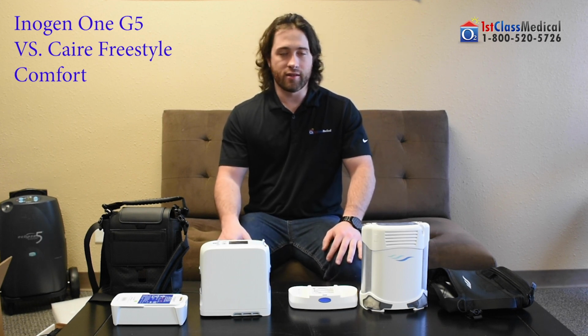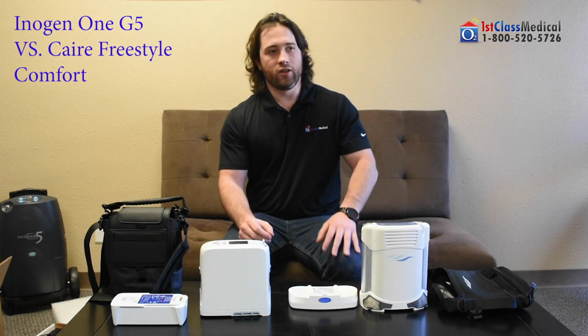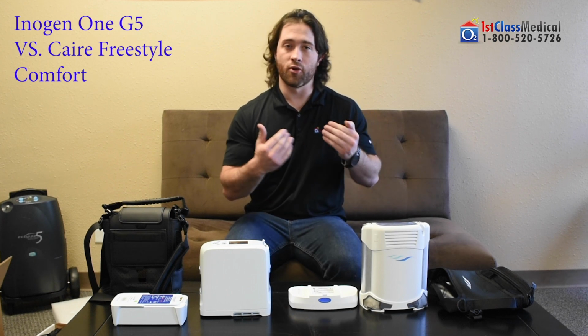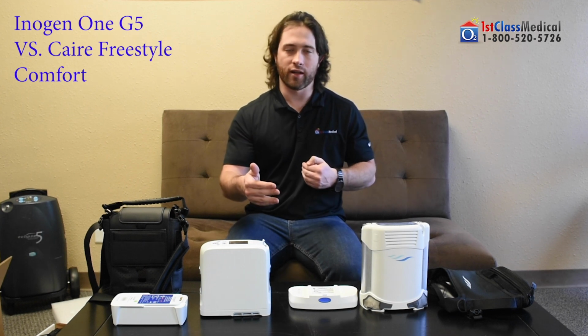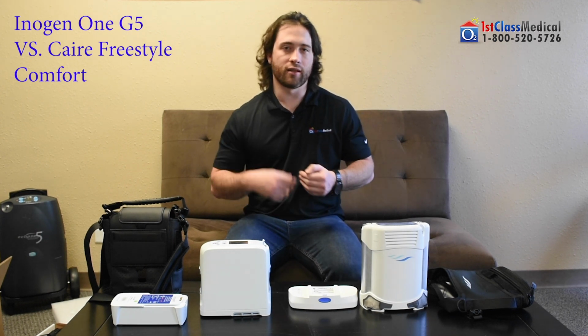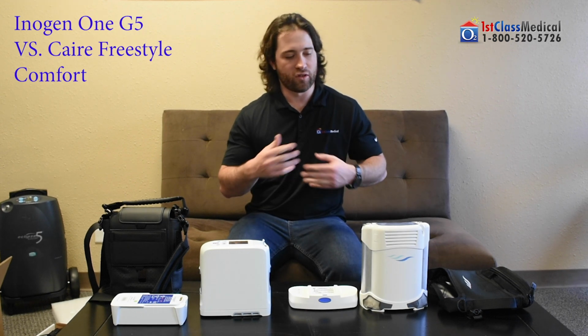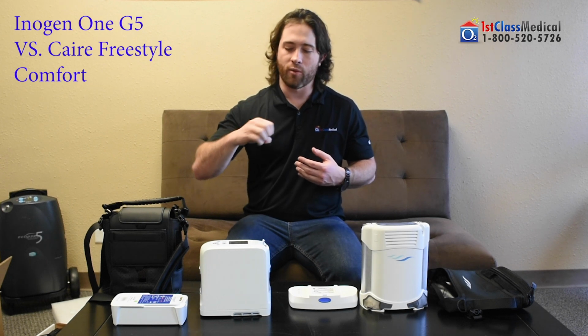That being said, what does the technology do? Well, at night when you're sleeping, your breathing becomes shallower and your breathing rate slows down. When that happens, the machine needs to make sure that you stay saturated. So the machine is going to detect the shallow breathing and the slower breathing rate, and it's going to then increase the amount of oxygen that's going out per pulse.